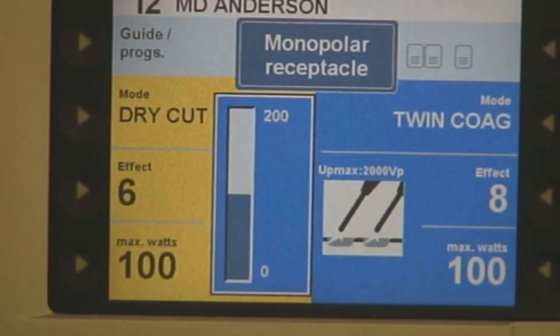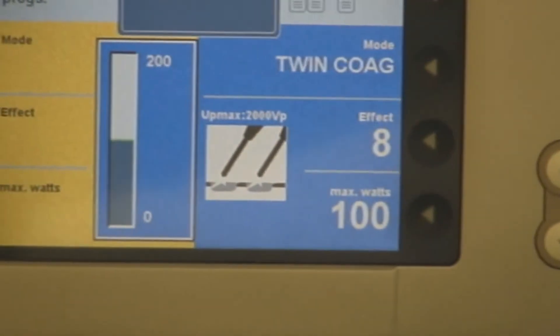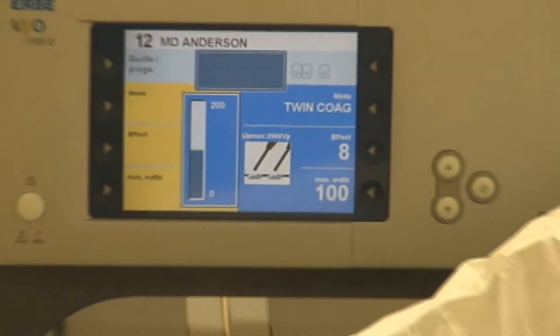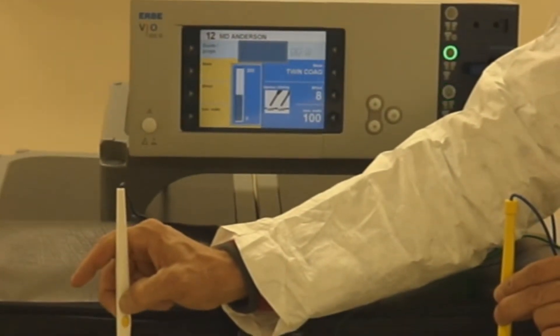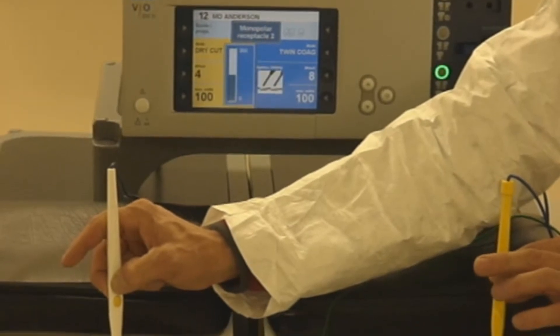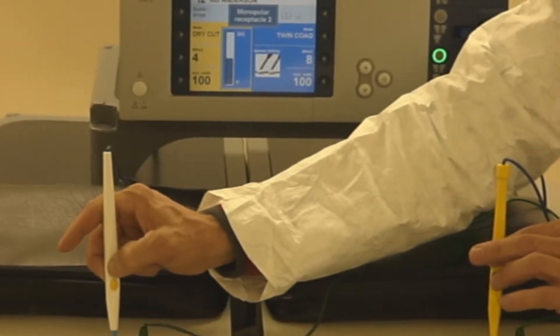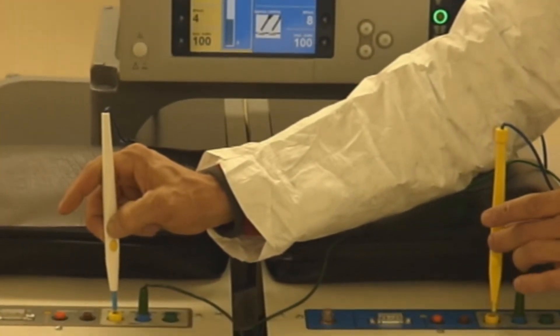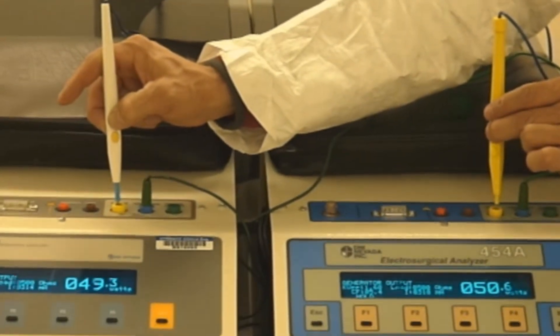Trying to pull the unit. 80 watts is delivered right now as I go back and forth. But here again, I was illustrating the shift and we're going to go ahead and bring in surgeon two again to illustrate the split. Surgeon one, surgeon two now is going to drop out. And there's the shift. Now we're going to come back into surgeon two to see the split.